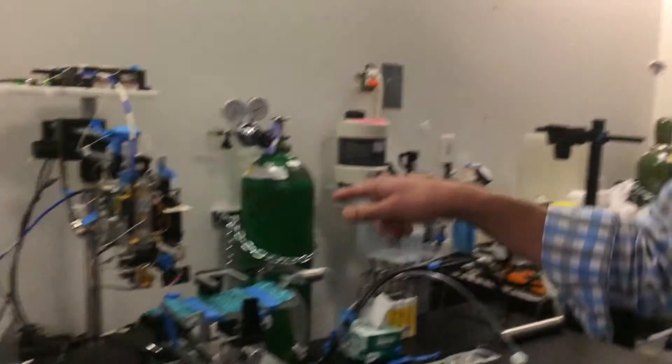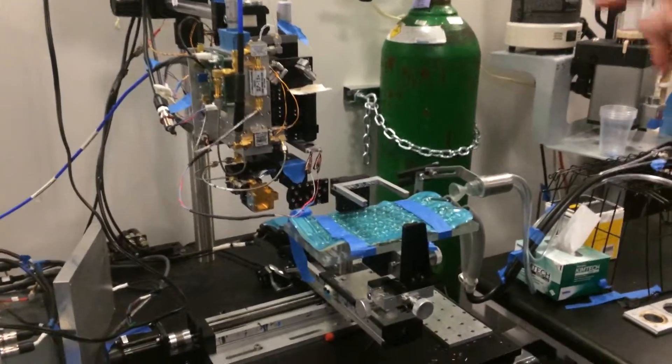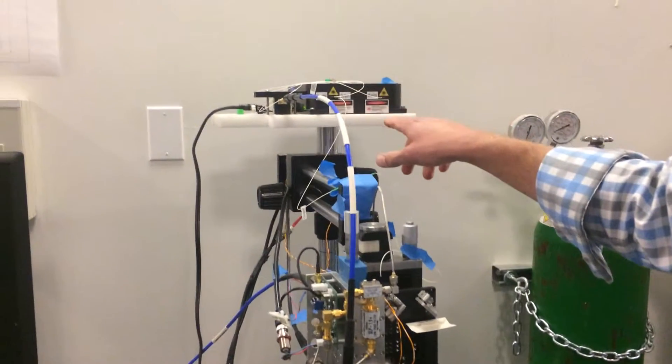What we have is a photoconductor switch that operates at 780 nanometers. We have this laser from Polaronics, you guys probably have heard of them.